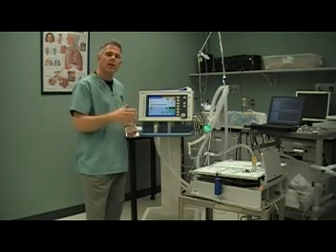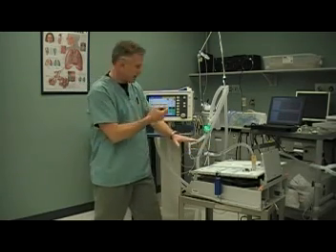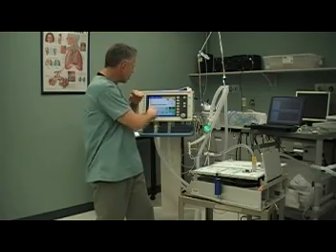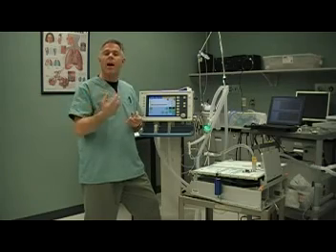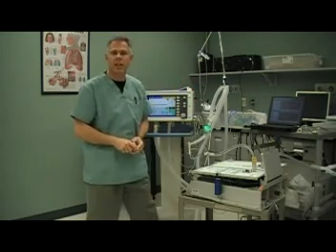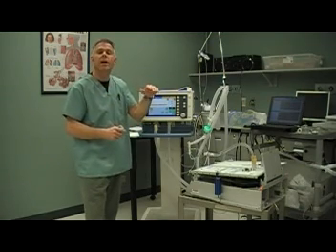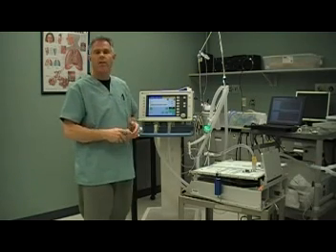In describing pressure support, the terminology we use is that it's patient-triggered — through flow or pressure — so it's patient-triggered. It's pressure-controlled, meaning the pressure in the circuit is maintained at our pressure support level, so it's pressure-limited. And it's flow-cycled, because as the patient's inspiratory effort declines and flow declines in the circuit, the alveolar pressures and mouth pressures become very close to equal and the ventilator cycles into exhalation. So: patient-triggered, pressure-limited, and flow-cycled. That's how we describe pressure support — it's a continuous, spontaneous mode of ventilation.